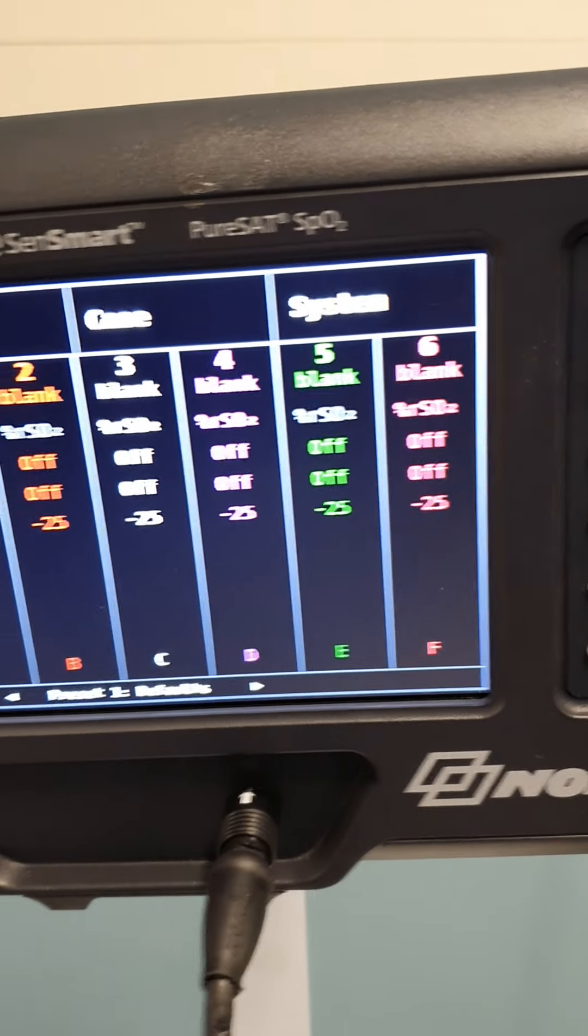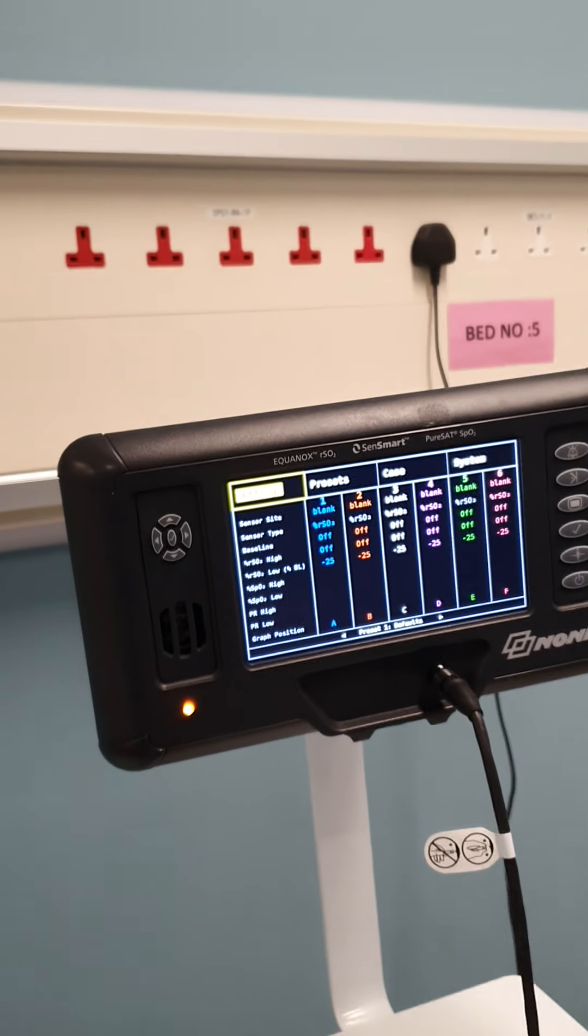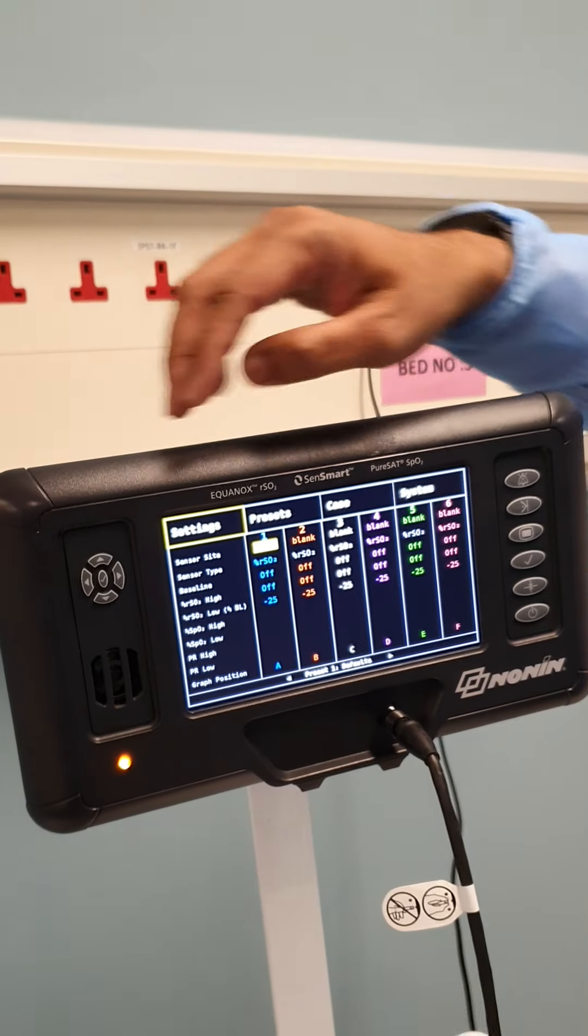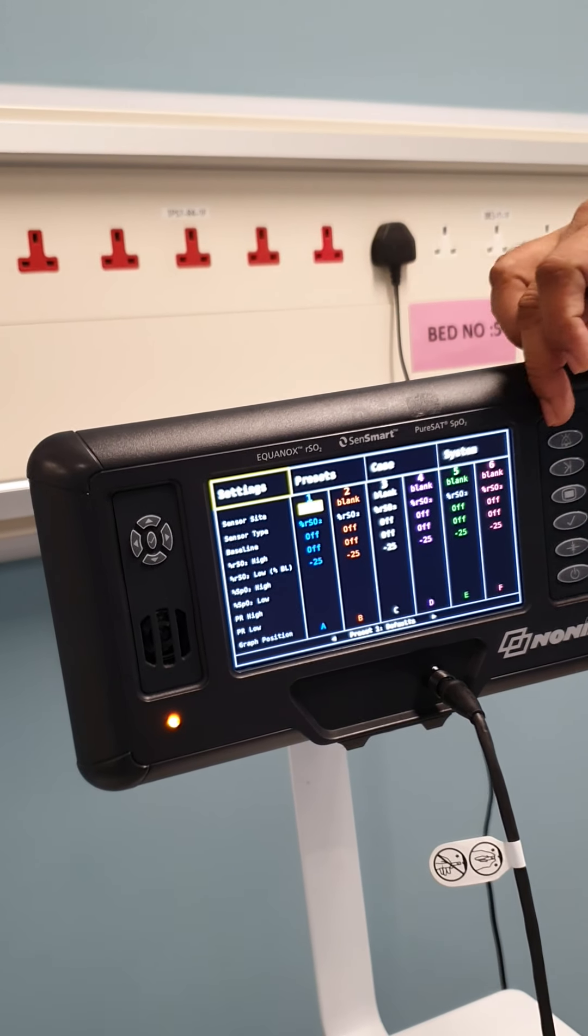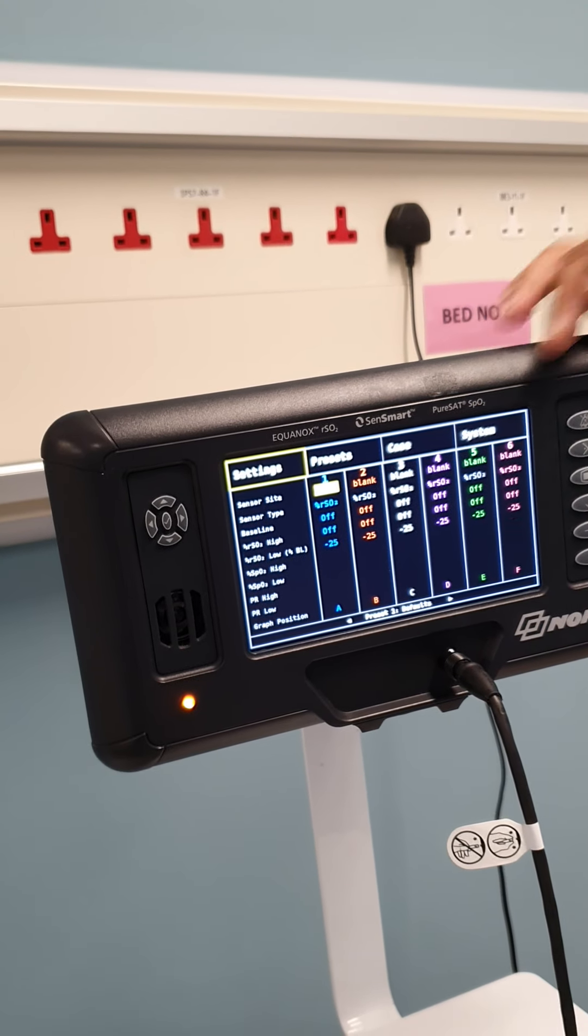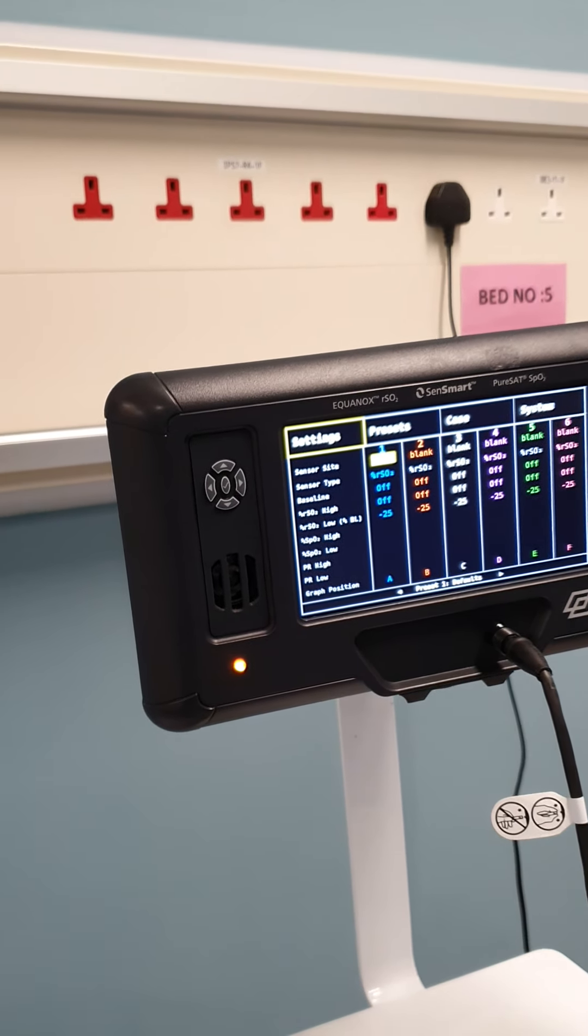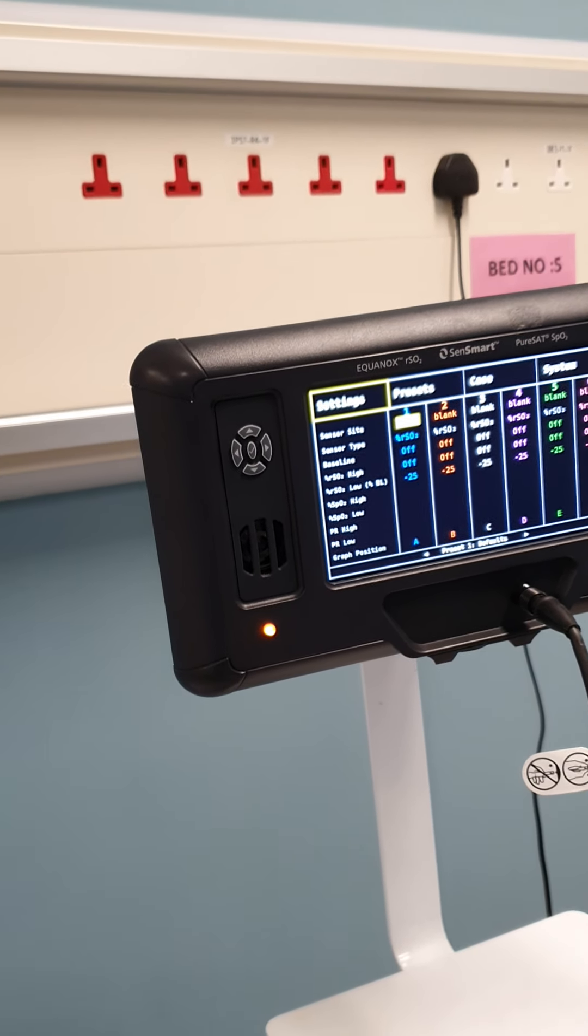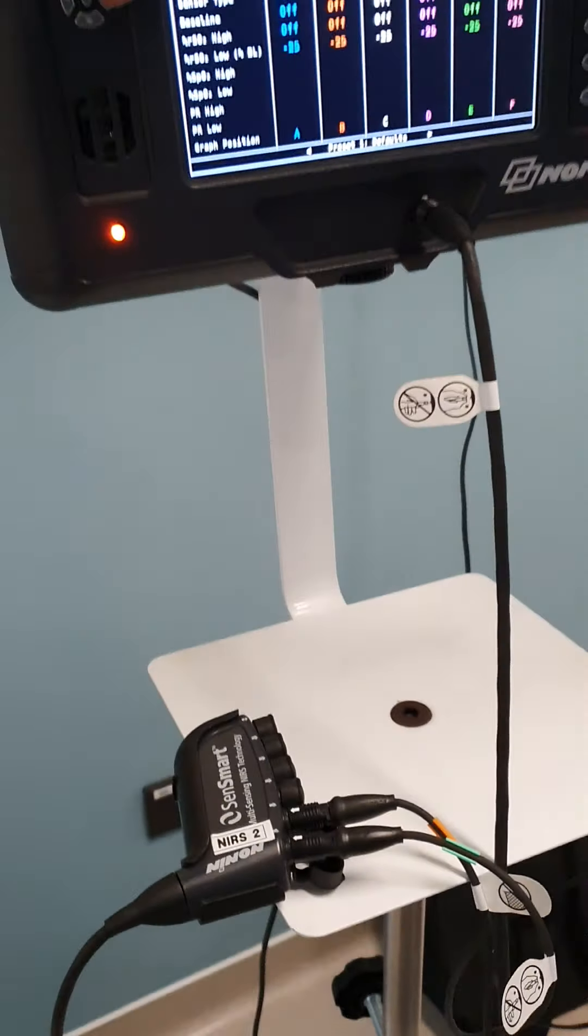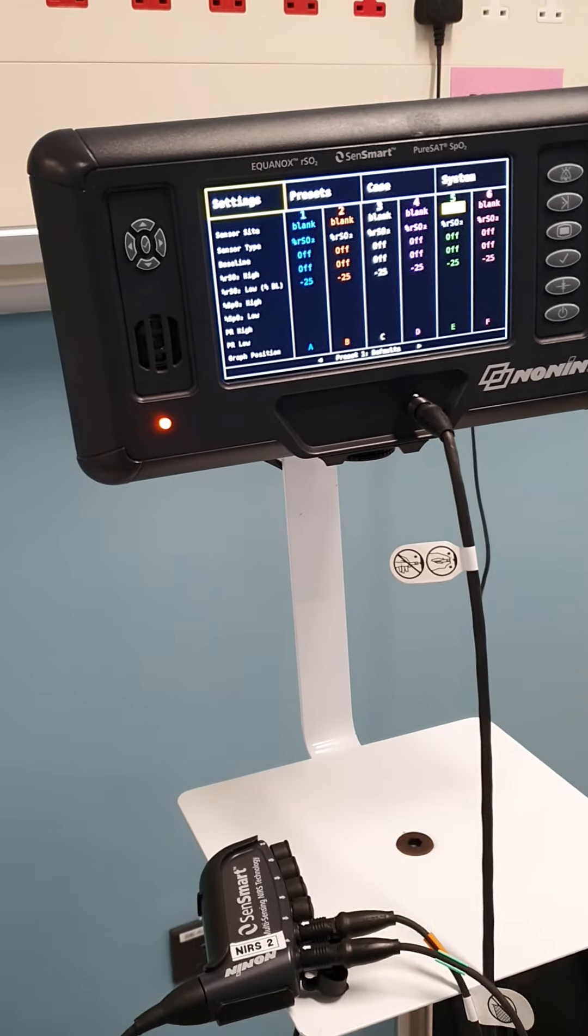This is the setting screen. On this setting screen, you can see setting, presets, case, and system. If I go over here on the setting screen, I'm using this one to go down. You can see I'm on my first channel. These are six channels which I mentioned in the hub. Each channel has its own different color coding. Each color coding is similar to what we have on the signal processor, so both are the same. Currently we are using green and orange. Let me just go to the green one.